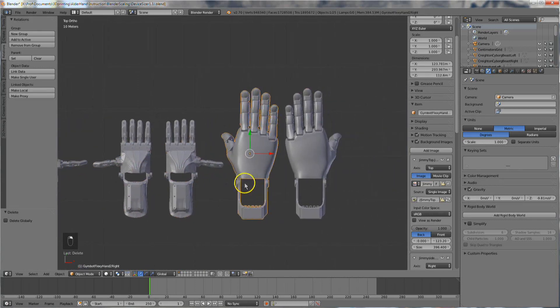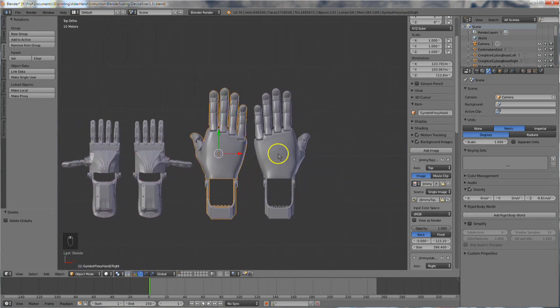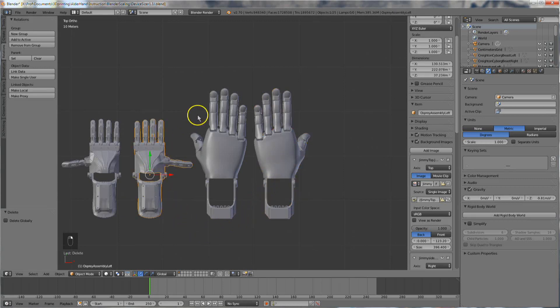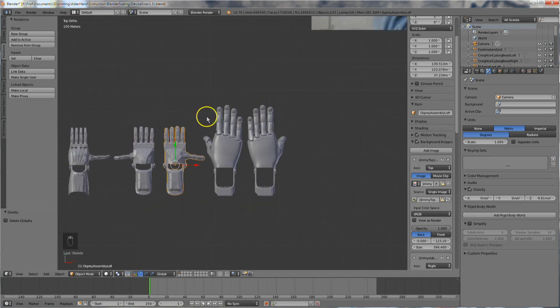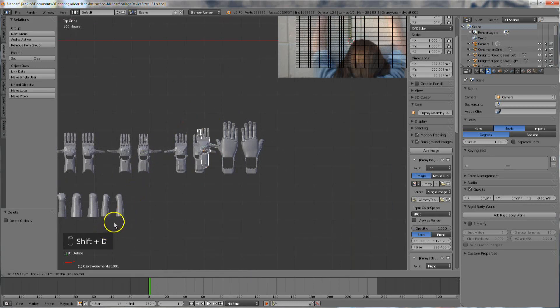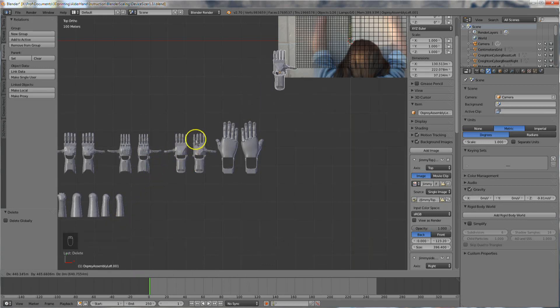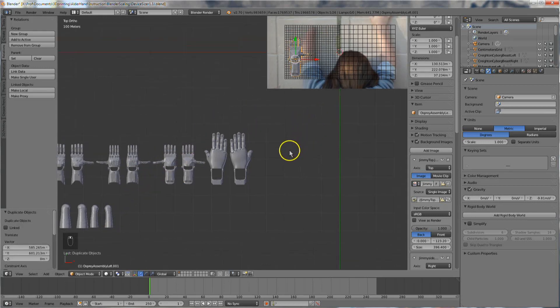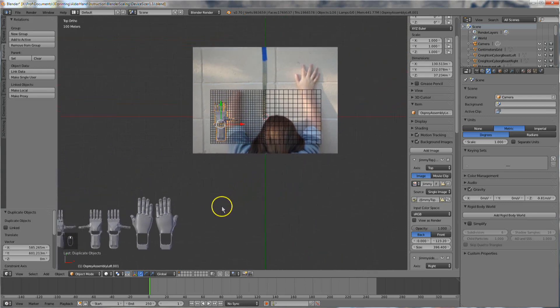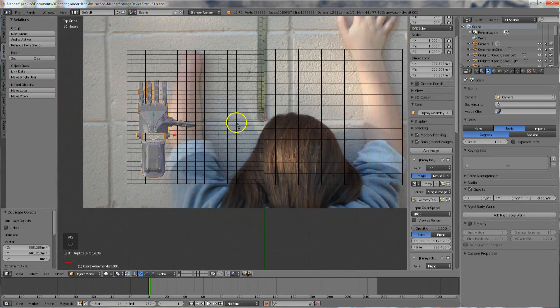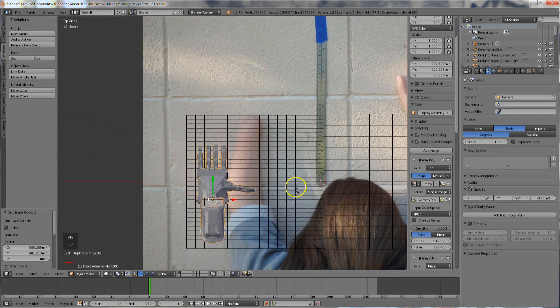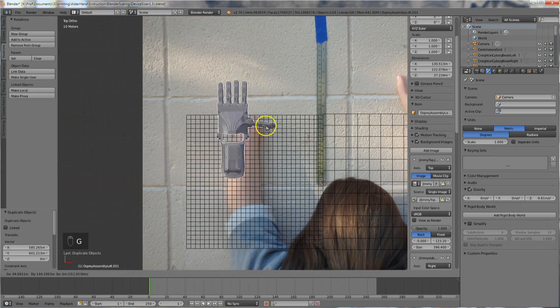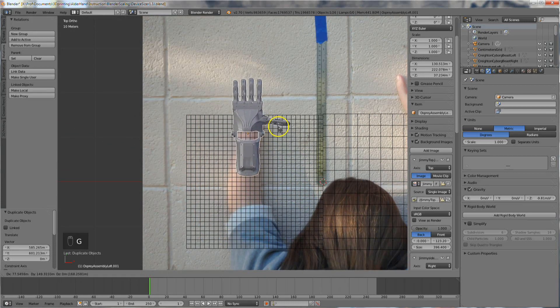I'm going to size an Osprey Hand today. Right-click to select it. Now hit Shift-D to duplicate the object and move the design over the photo. Left-click releases the object. Use the G key to grab the object again and left-click to place the device over the middle of the client's wrist.